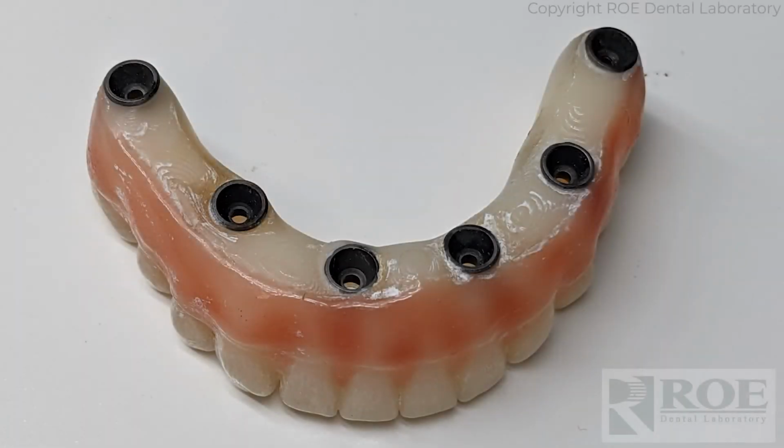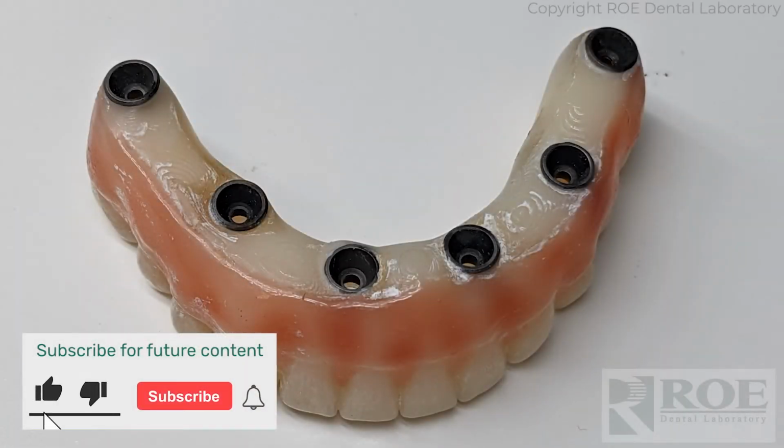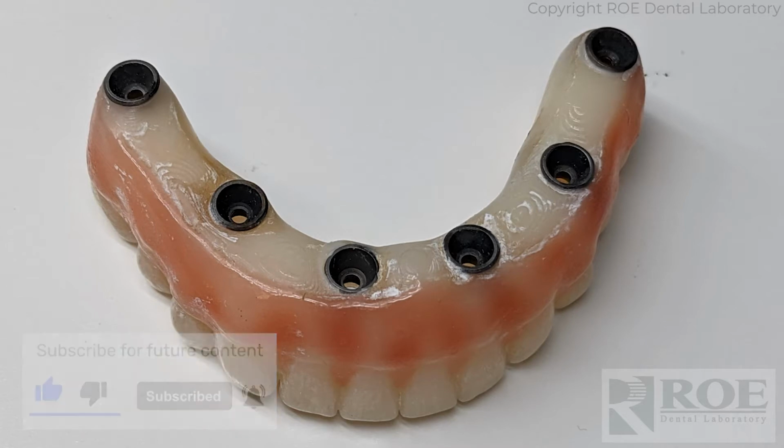This video will explain the analog RAPID Appliance technique. The RAPID Appliance is simply a duplicate of an existing prosthetic with a twist. The patient presents with a prosthetic that needs replaced. Teeth are broken down, perhaps there's some chipping, the pink is fracturing, there's some issue. But the prosthetic itself is still intact so that we can create an analog model.